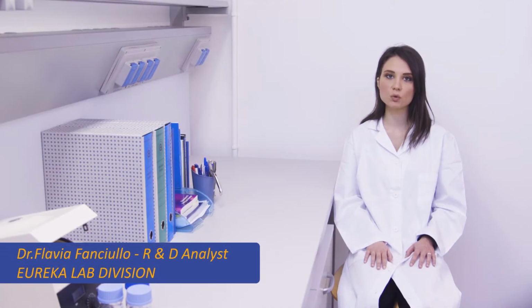Good morning. Today we're talking about the dosage of urinary 1,2-cyclohexanediol, using an exclusive kit for the specific analysis and using a gas chromatograph combined with a mass detector and a FID detector.